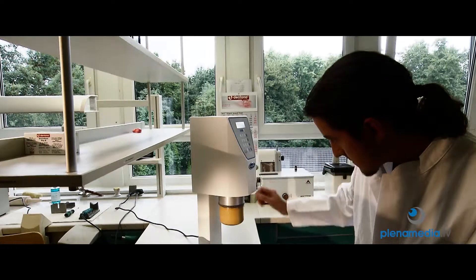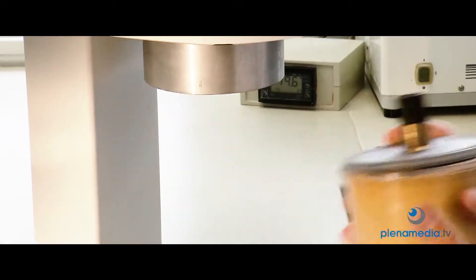Up to 40 bars of pressure, the dental performance check of each production batch.